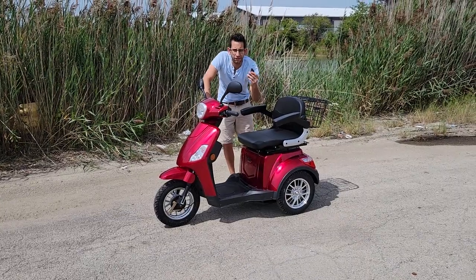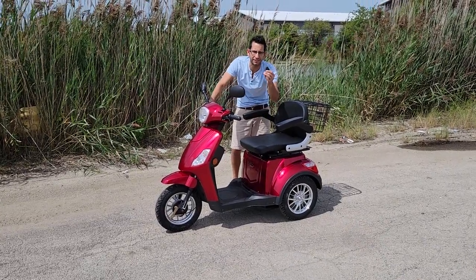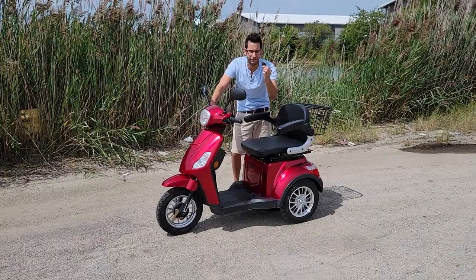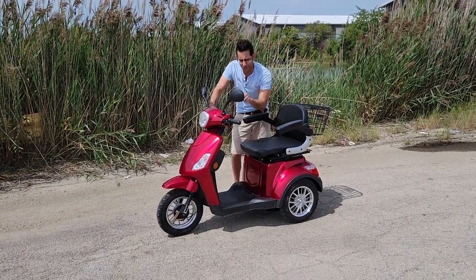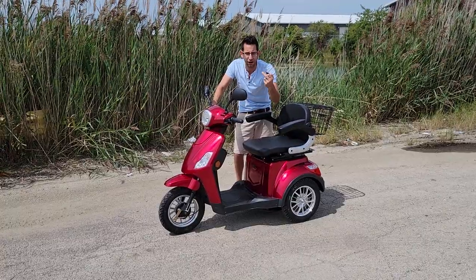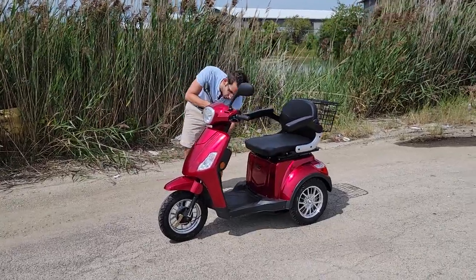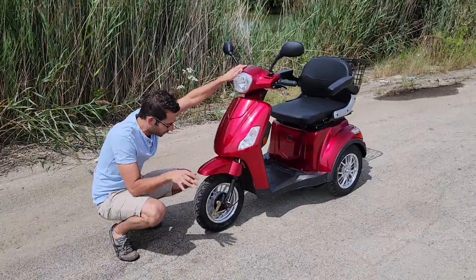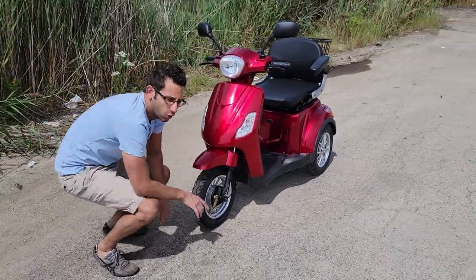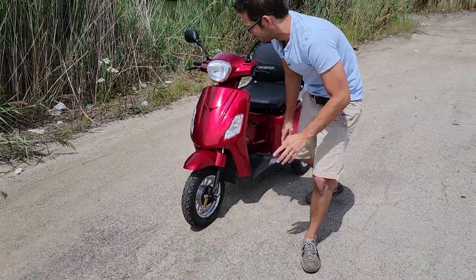What's up everybody? It's Gary here from saferwholesale.com. I've got the new keys to your new car. Yes, this is for you old fogies out there. I've got a lot to show you — lots of great features. I always do younger videos, but today we're doing one on the Mobility Safer 123.